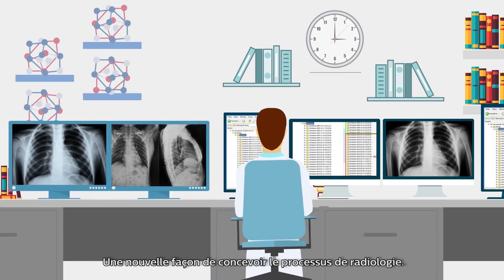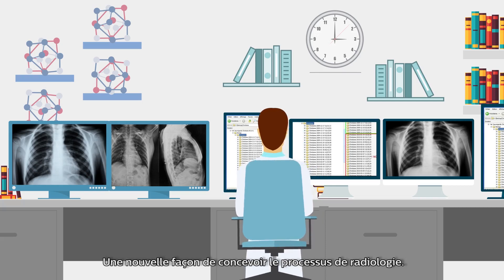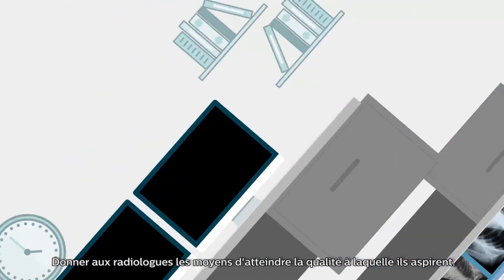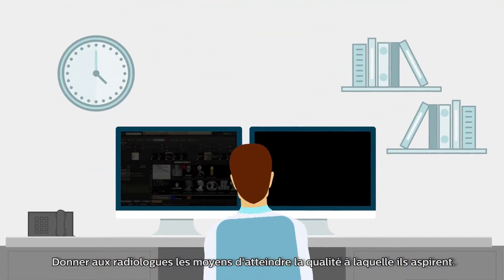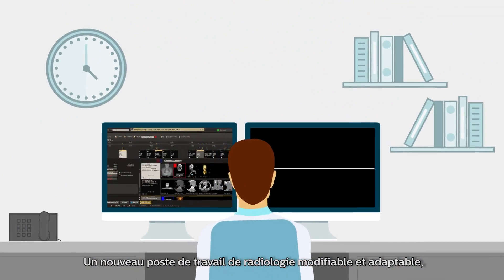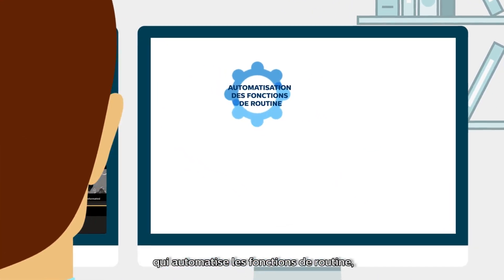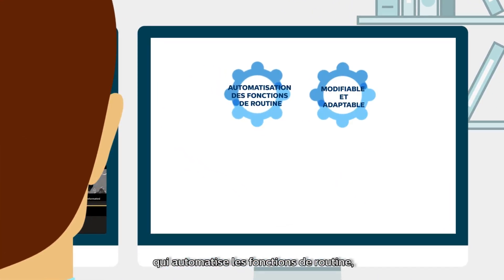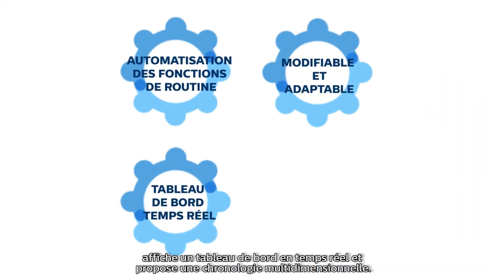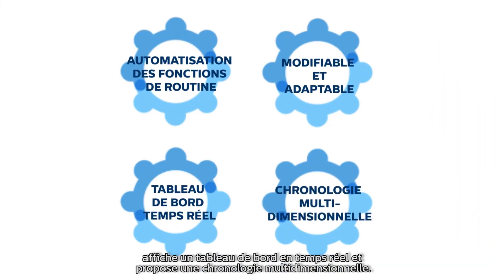A new way of looking at radiology workflow, empowering the radiologist to achieve their goal of high quality. A new radiology workspace that automates routine functions, is modifiable and adaptable, displays a real-time dashboard, and has a multidimensional timeline.